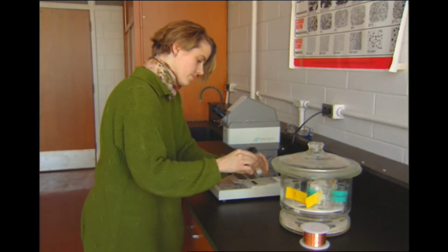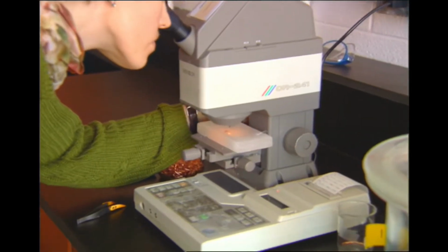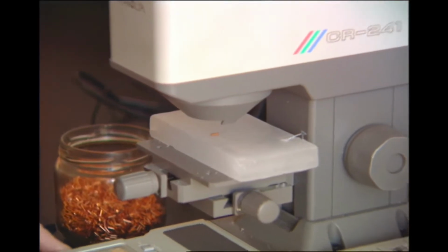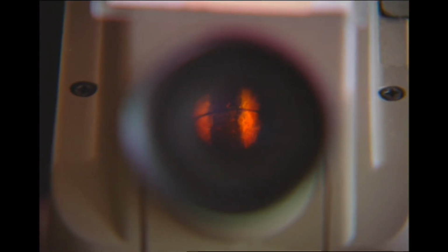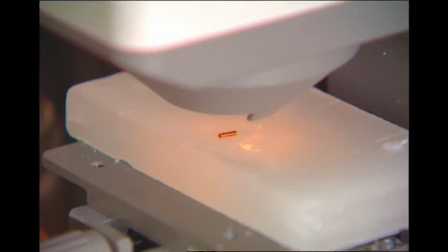In order to ensure that copper tarnish on our IUDs is kept to a minimum, research studies were carried out in order to establish quantitative relationships between environmental conditions and copper discoloration. New sensitive analytical procedures were developed to measure the reaction kinetics associated with copper discoloration so that production and packaging would minimize the discoloration of the highly reactive copper.